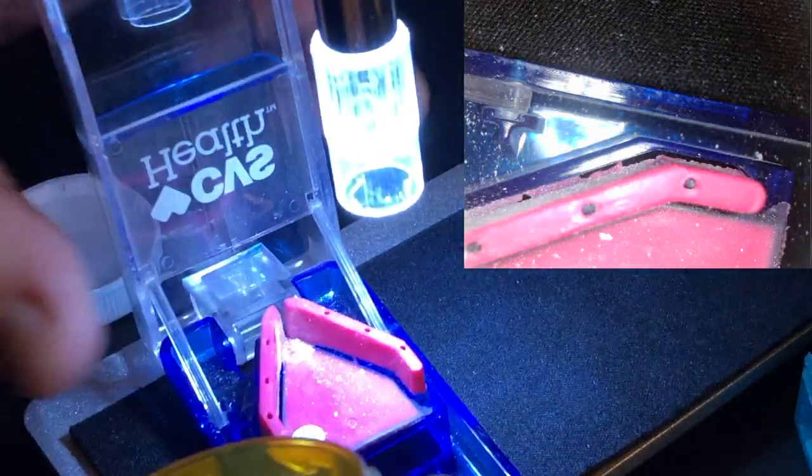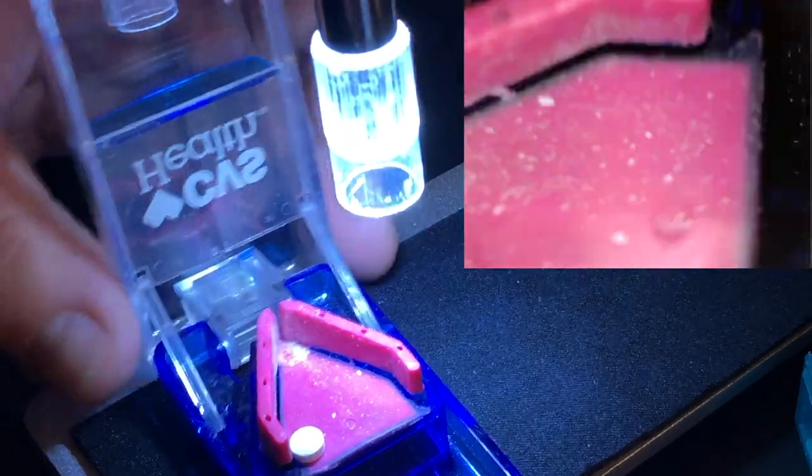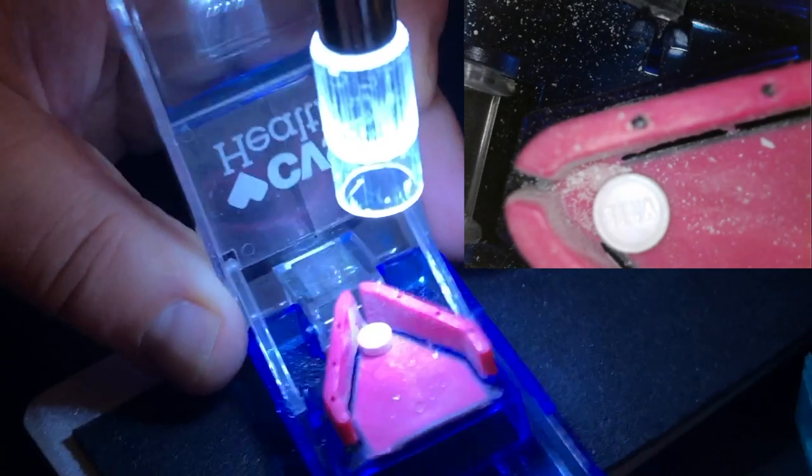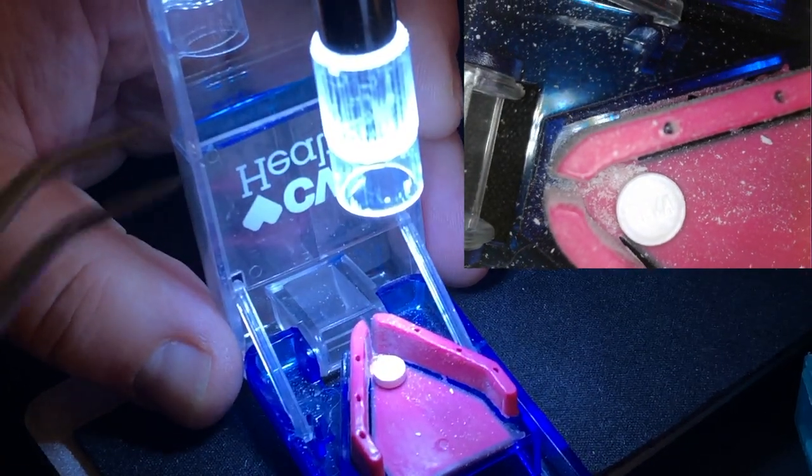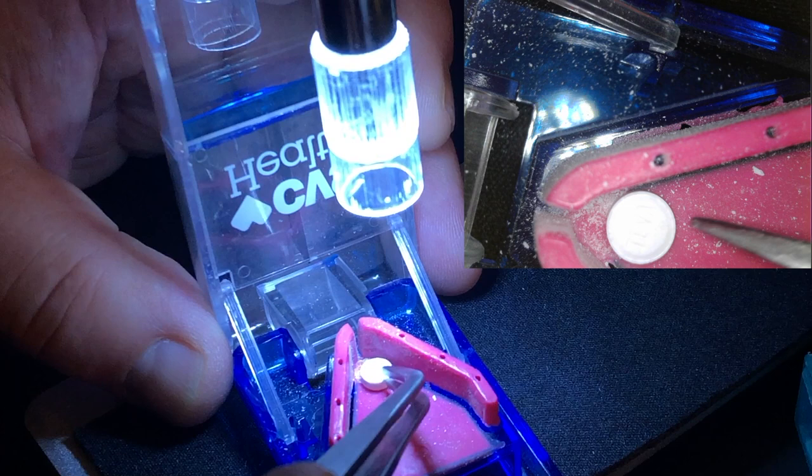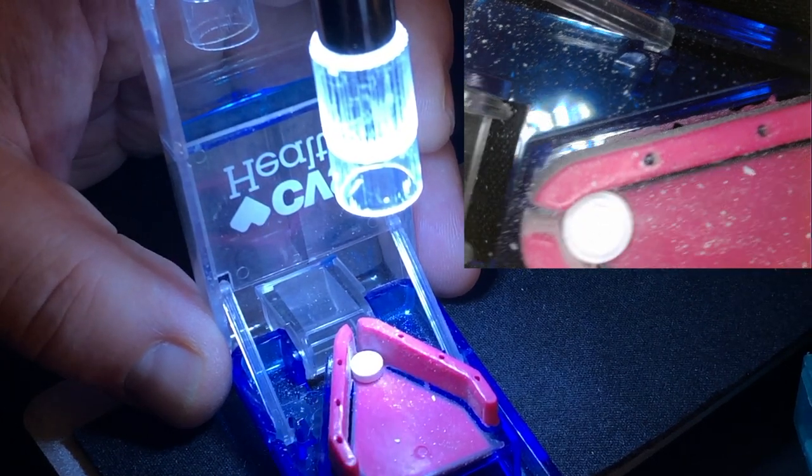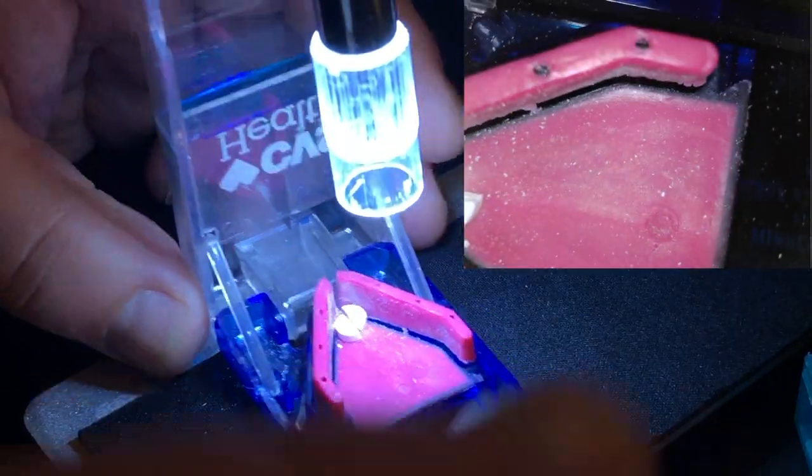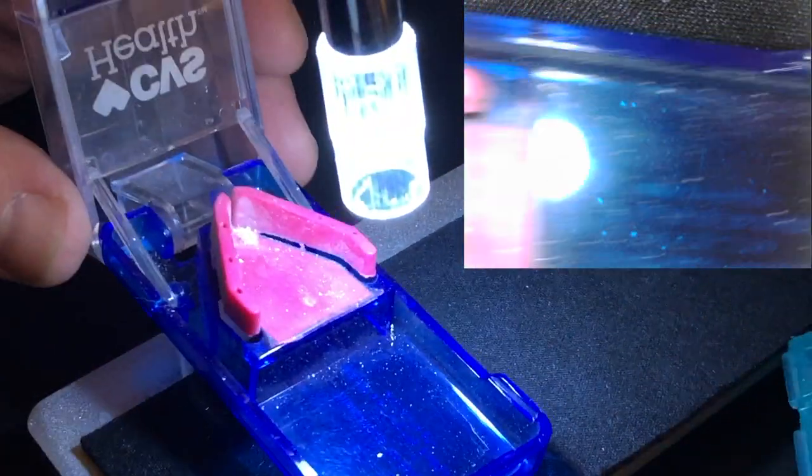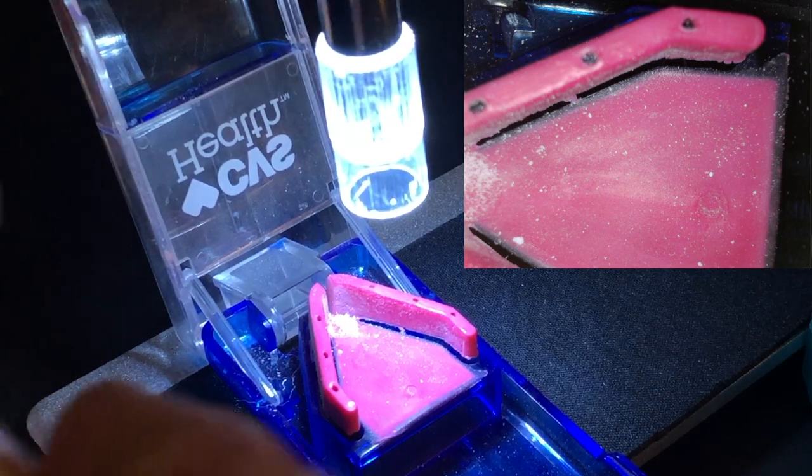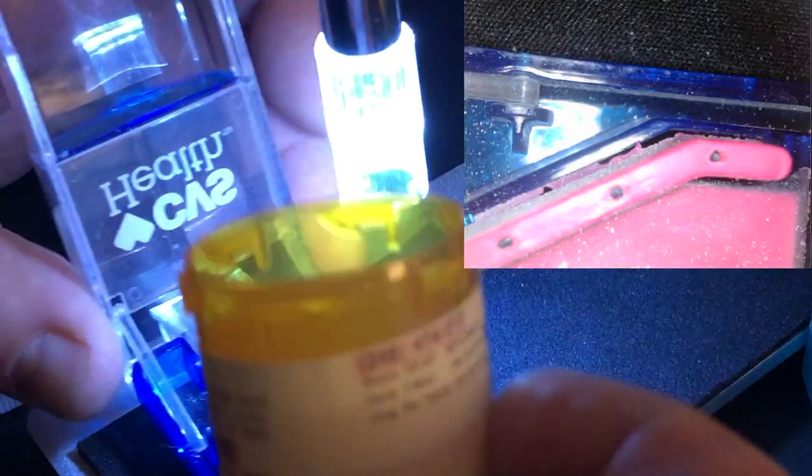Take a new pill for the next day. It's a little bit of work, but if you have high blood pressure, then it's calming work. Just sit down, take your time. There we go, look at this. See that? In half. If you have ever done this before, then you know how difficult this is. And I hope this video helps you, trying to cut your own pills in half a little bit better.